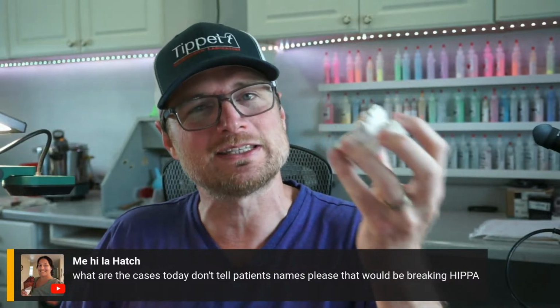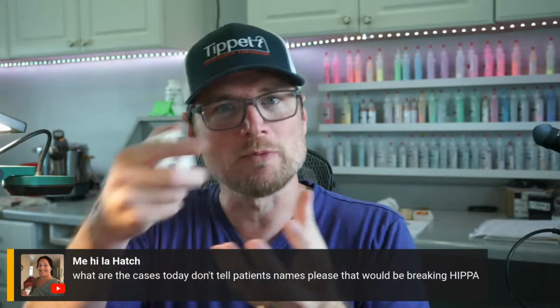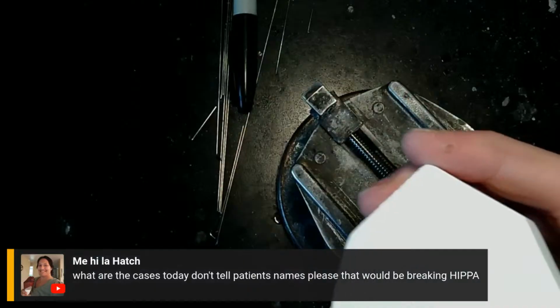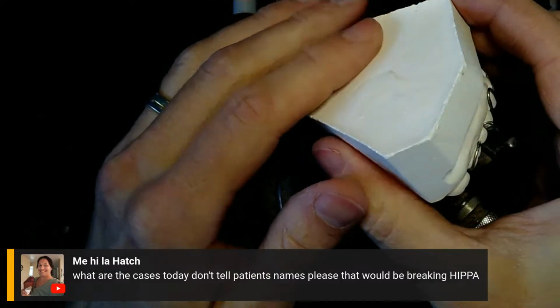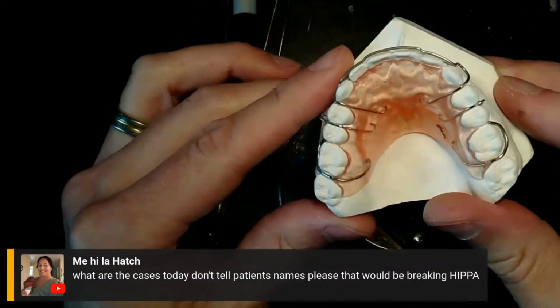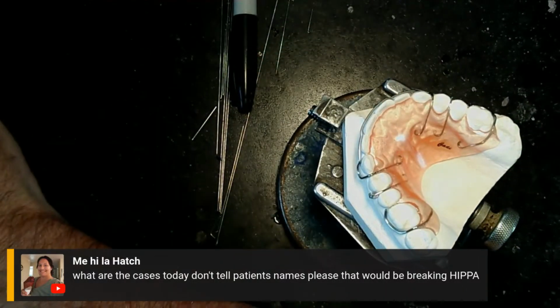What you get when you get the CDT exam, you get these silicone molds and you pour them up, and you can pour up a whole bunch. And in fact, I don't know if you can see this very well, but you can actually see where I poured it up from the mold. So I don't know if this is exactly what you'll get on the CDT exam.